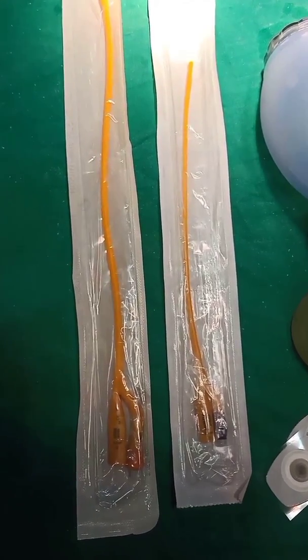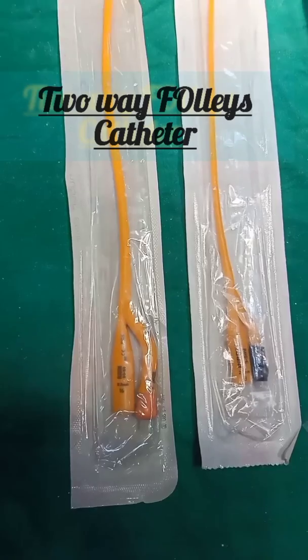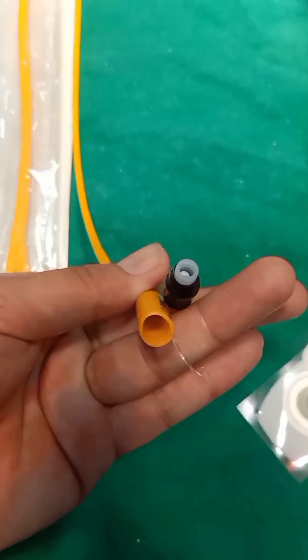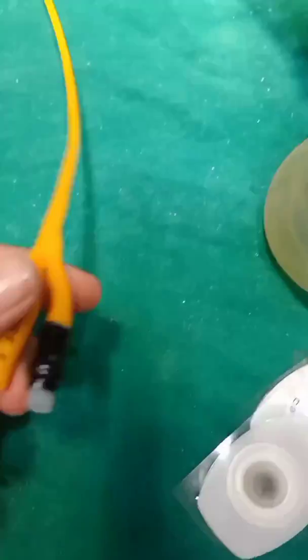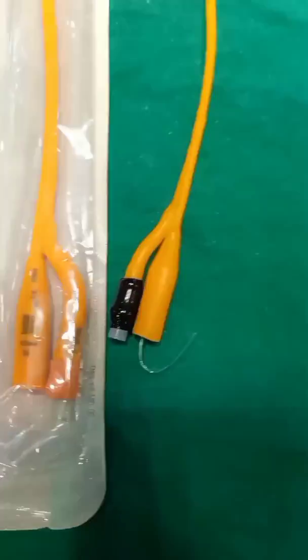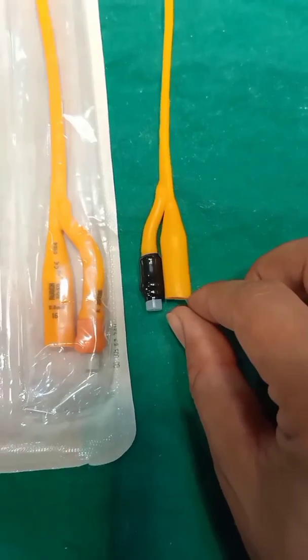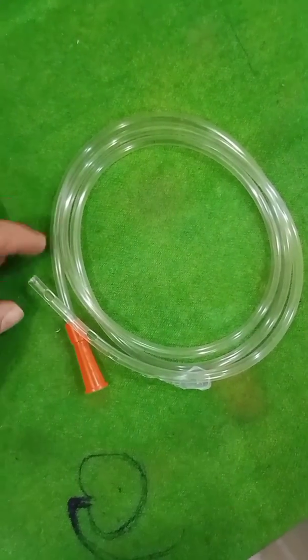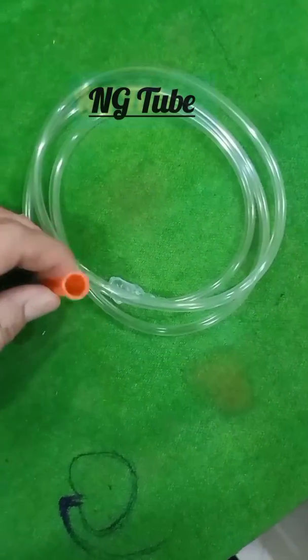The item you are seeing on the screen is a two-way Foley catheter. It comes in different sizes and varies from 16Fr to 24Fr. It also has color coding: orange is 16Fr, red is 18Fr, yellow is 20Fr, purple is 22Fr, and blue is 24Fr.